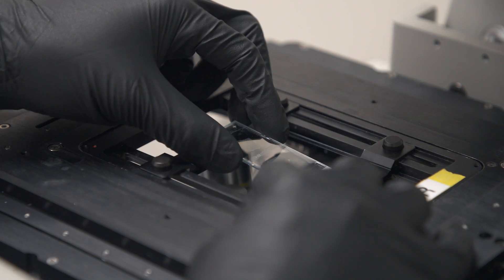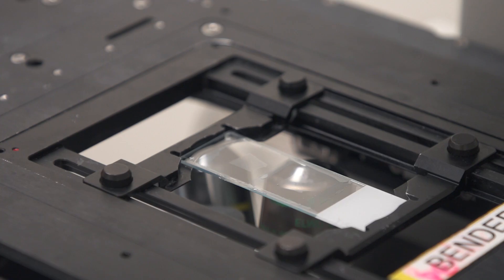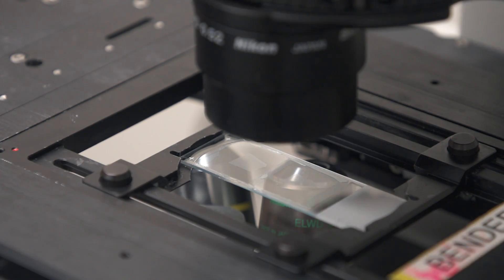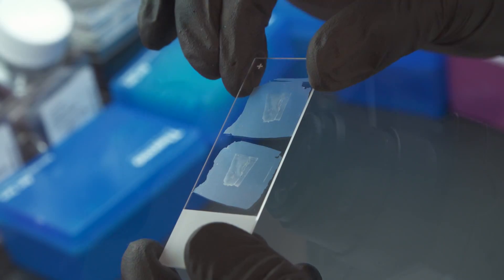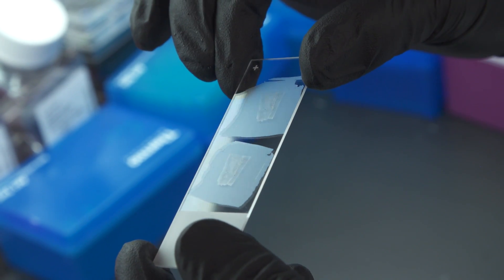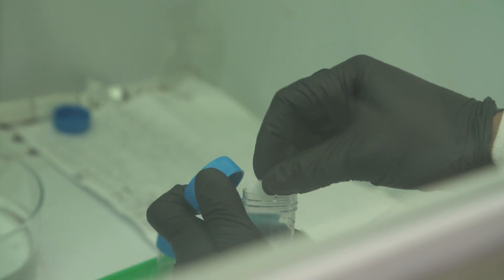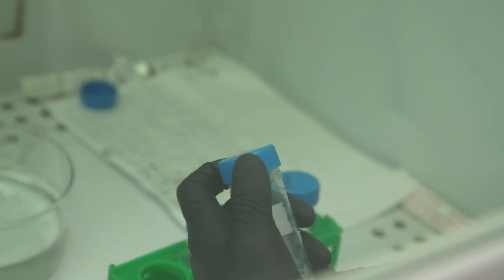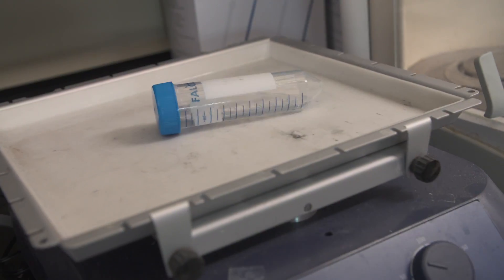Today, we will demonstrate technology called expansion pathology. It's a procedure that enables us to enlarge various kinds of clinical samples for optical imaging. The first step is to pre-treat the various kinds of clinical specimens so that they are ready for expansion.